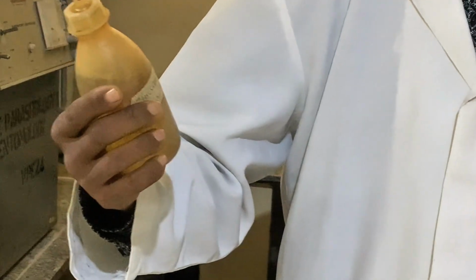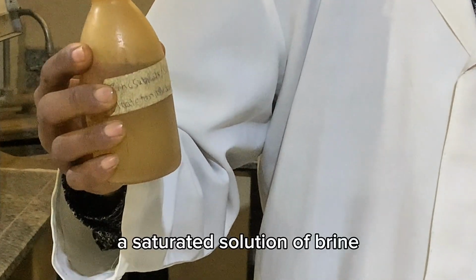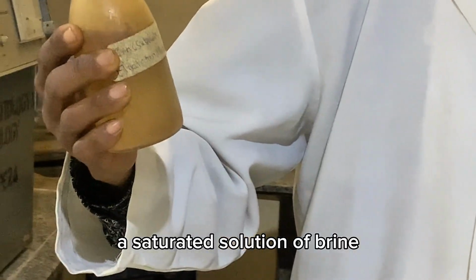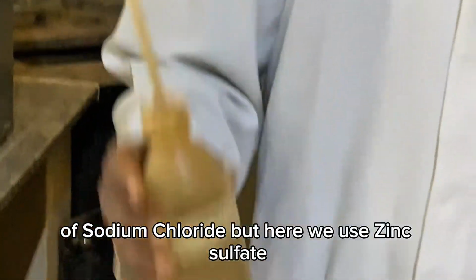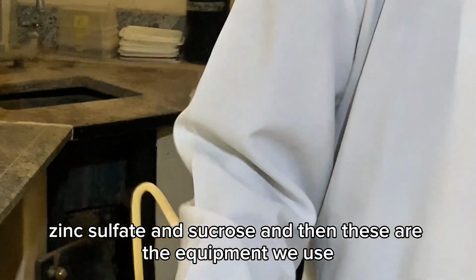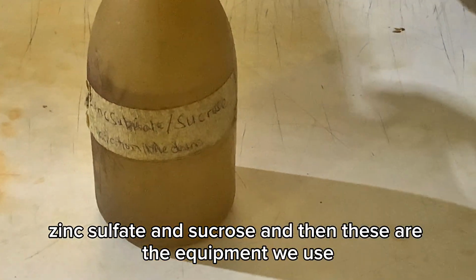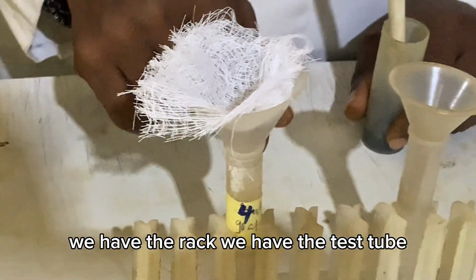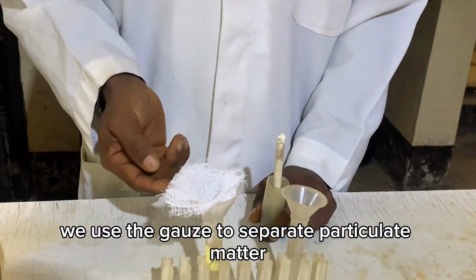So here we have our flotation medium. Flotation medium is simply a saturated solution of brine, of sodium chloride. But here we use zinc sulfate and sucrose. And then these are the equipment we use. We have the rack, we have the test tube, we have a small funnel with gauze. We use the gauze to separate particulate matter.